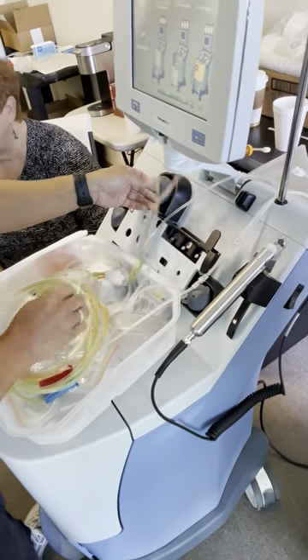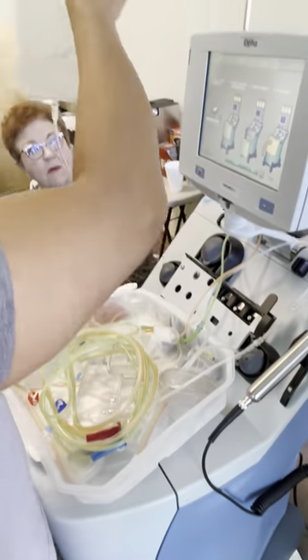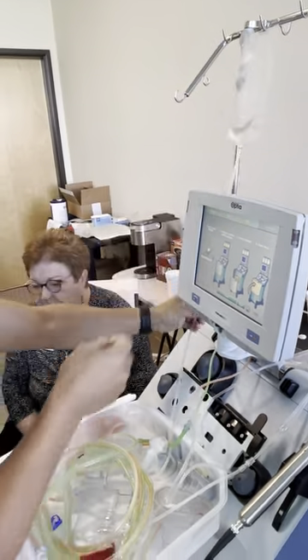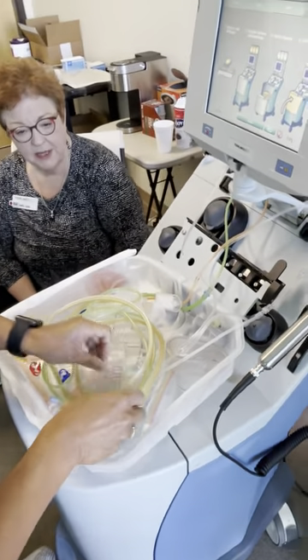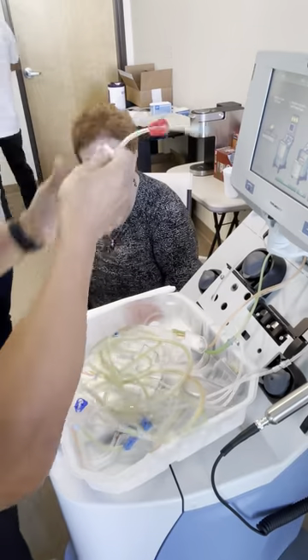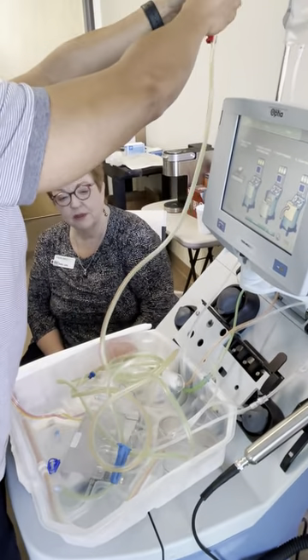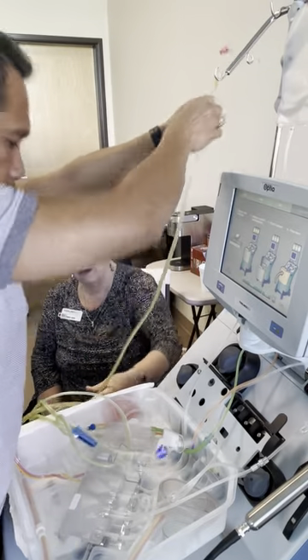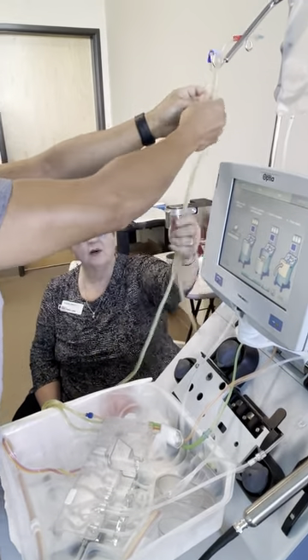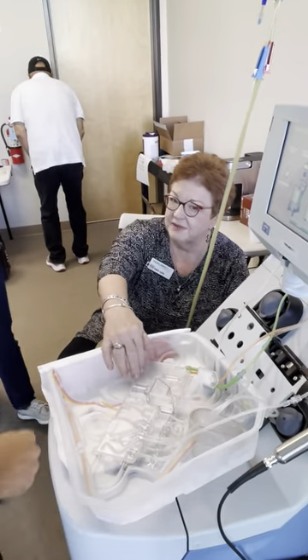Take out the vent bag and hang it on hook unit two from the left. Take out the inlet line, red roller, red clamp. Hang it on the left front hook. Take out the return line, blue roller, blue clamp. Hang it on the left hook with its buddy, inlet. They always go together because they both come off of the same side of the cassette.